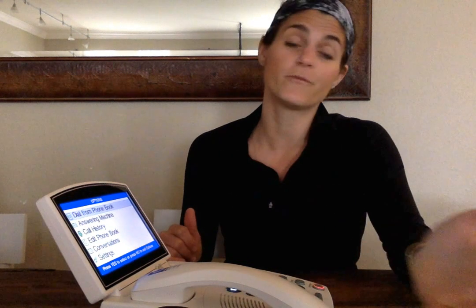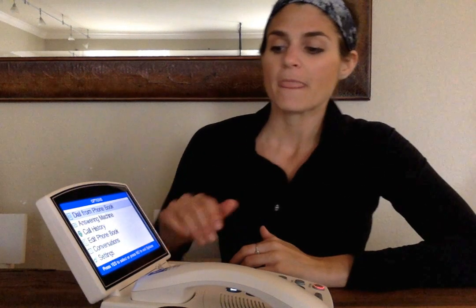conversations. That's where you can go back and look at old conversations that you had. It'll save about 500 lines worth of text. So say I said, hey, let's go see a 12:45 movie. You said, okay, see ya, and you hung up the phone and you forgot, you can go back and double check. It's also helpful if you think you might have heard something wrong or you didn't know if you remembered it wrong. And at the very bottom, there's settings.